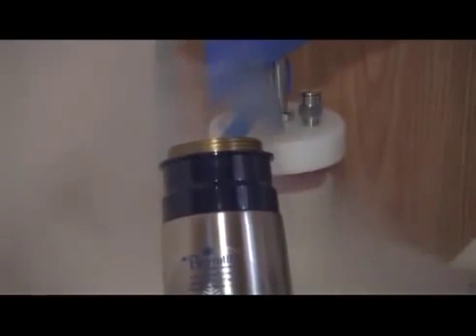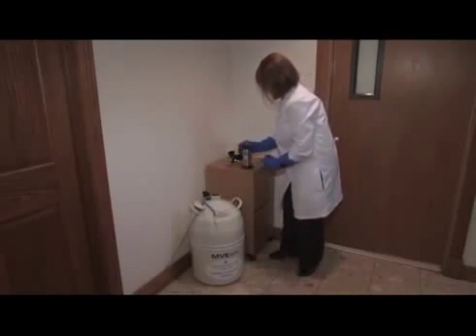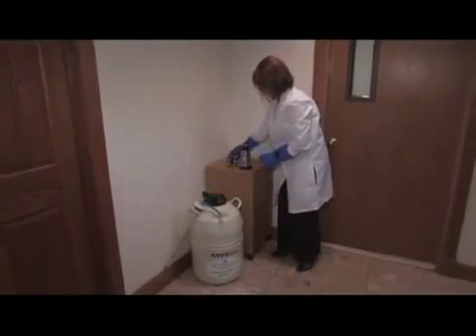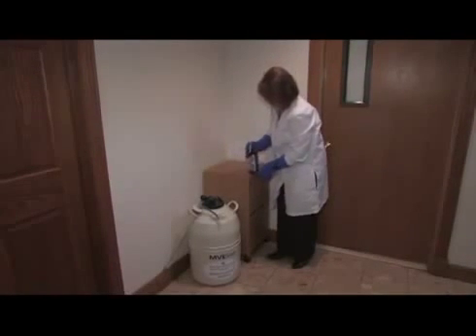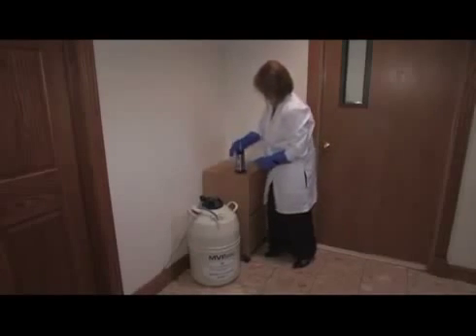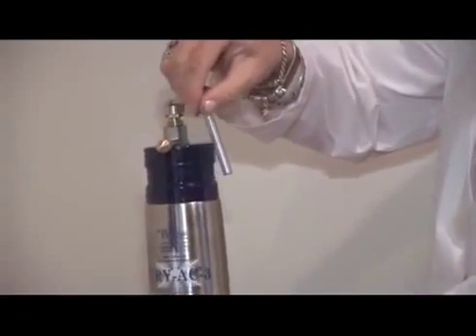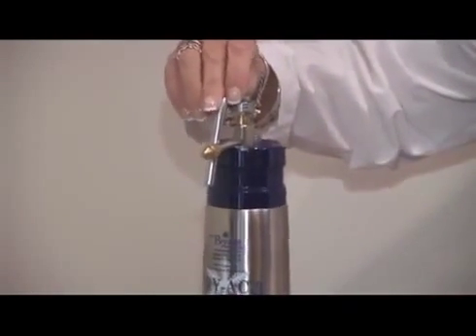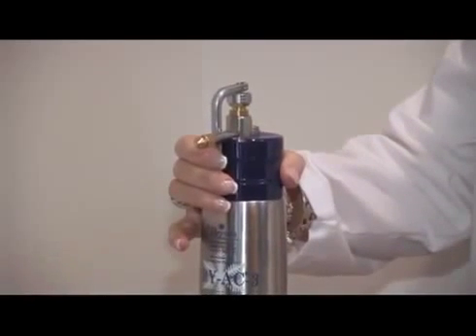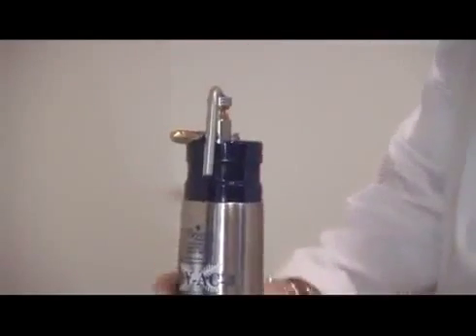Fill the bottle about 70% full. Slowly release the withdrawal tube seal by lifting the tube and the bottle together. Place the tube in the handle. Put the dewar cap back on the dewar. Screw the top back on the bottle. Now turn the trigger to the proper front position of the Cryac on either the left side or the right side of the nozzle. Your Cryac is now ready for use.